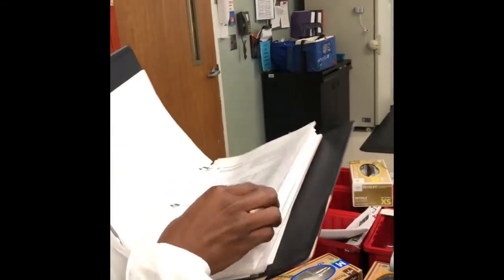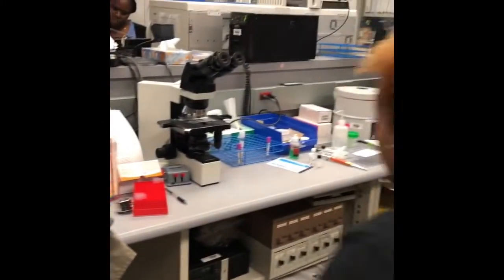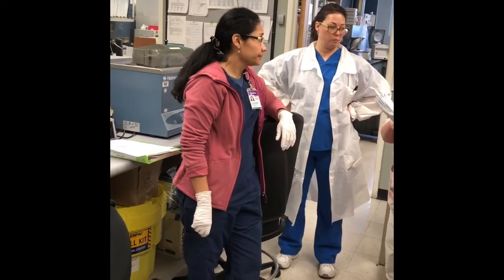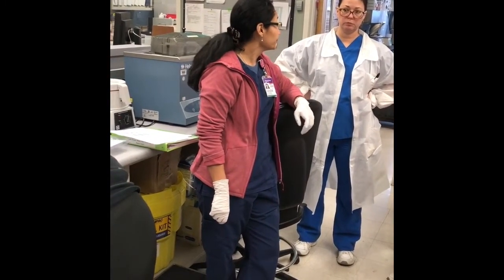That's in the refrigerator. The body fluid QC was on the same shelf as the Iris body fluid QC. Okay, that's the manual body fluid QC, RBCs and WBCs all together. For the QC, you count all the squares on both sides and add it together, and then average.